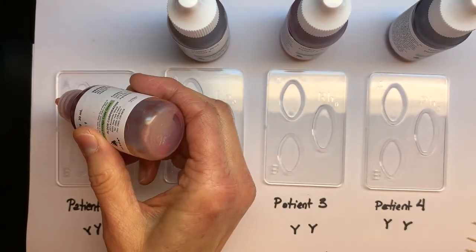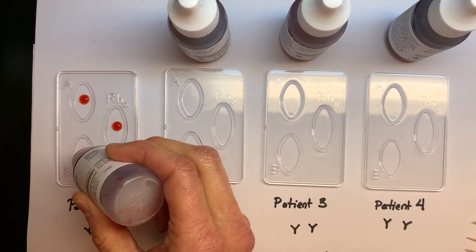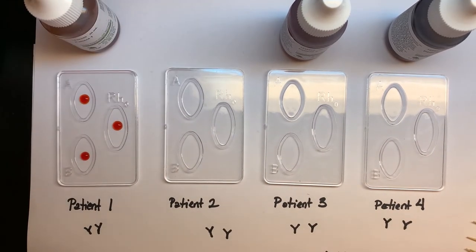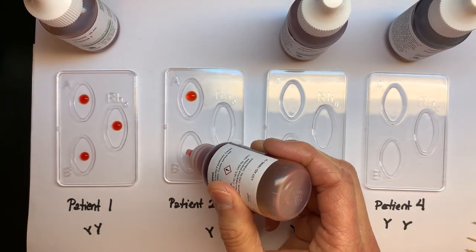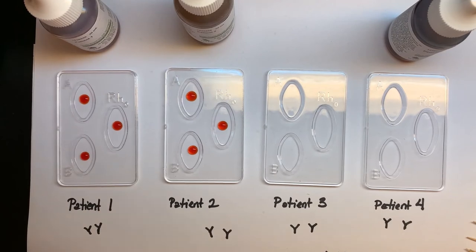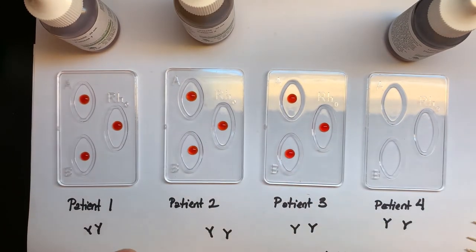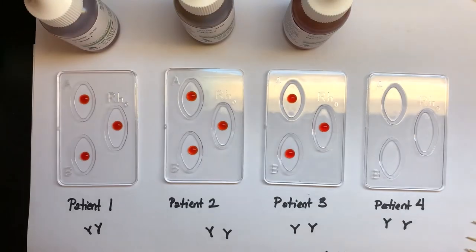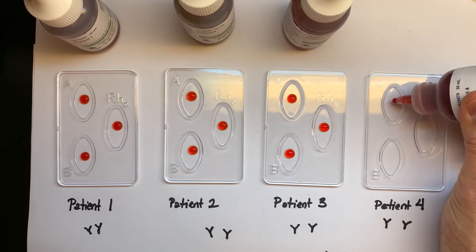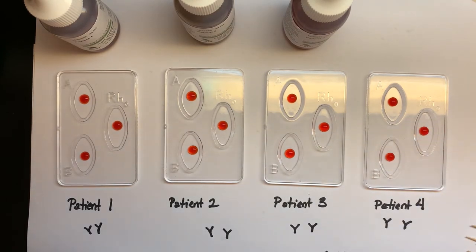The instructions say: take one drop of patient one and put that drop in each of the wells in the tray. The wells are labeled A, B, and RH. Then do each of the patients — patient number two, three, and four — just one drop into each of the three wells for A, B, and RH. That's where we're going to put the antibodies that match those letters. If you're trying to learn this while we go, make sure you have your chart or the drawing that you've done.